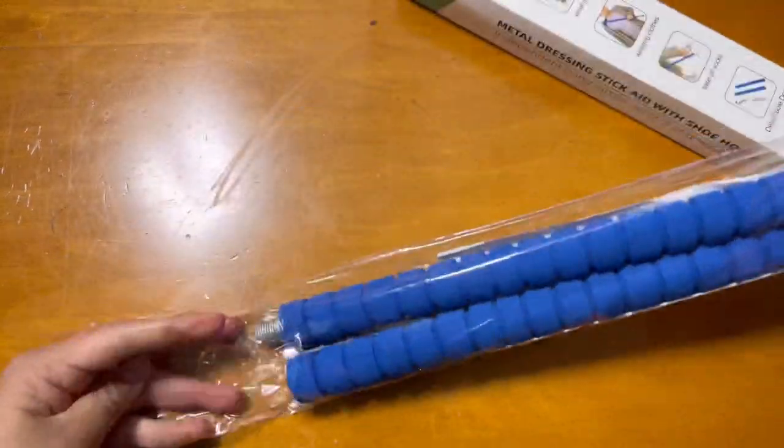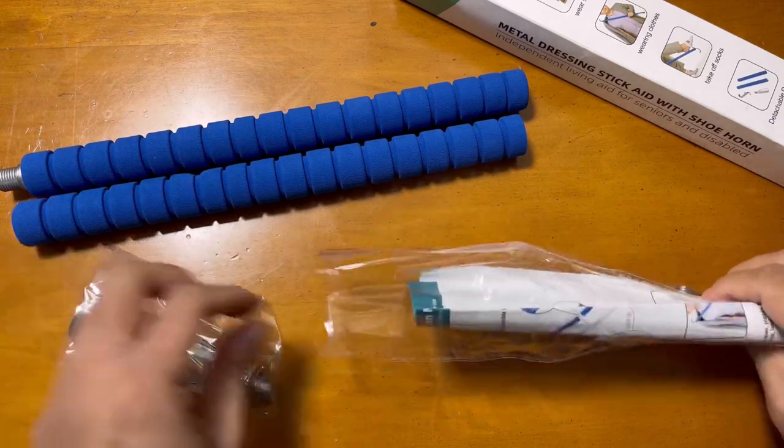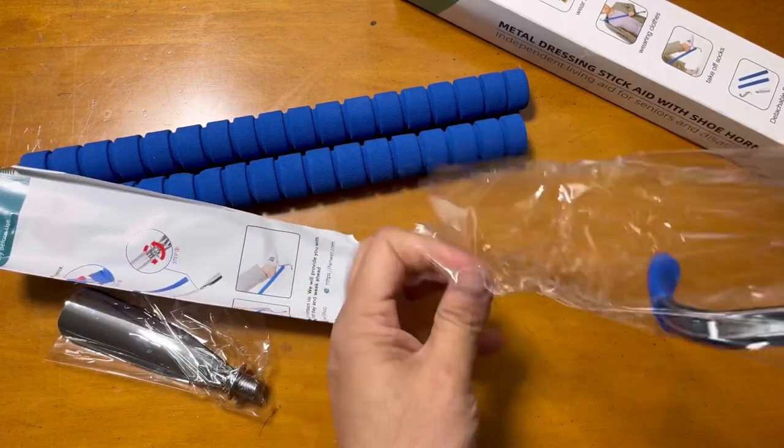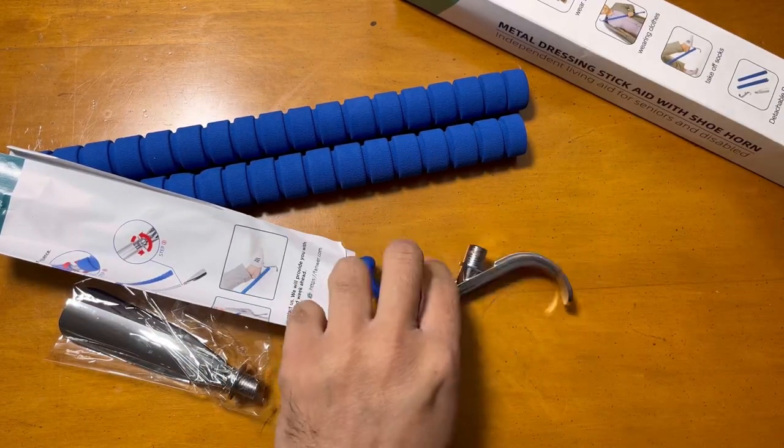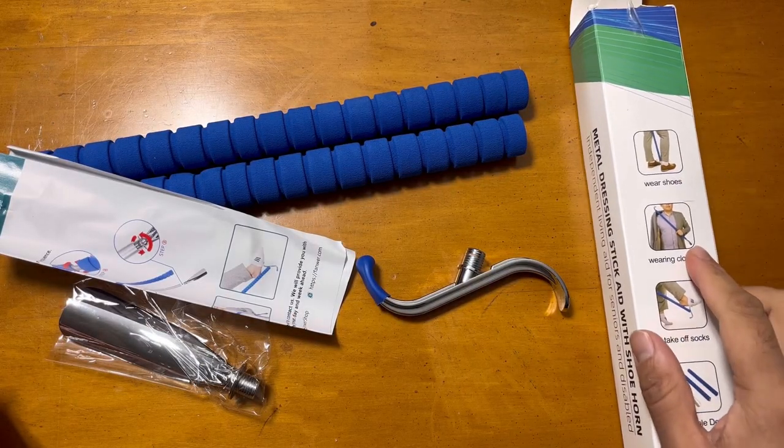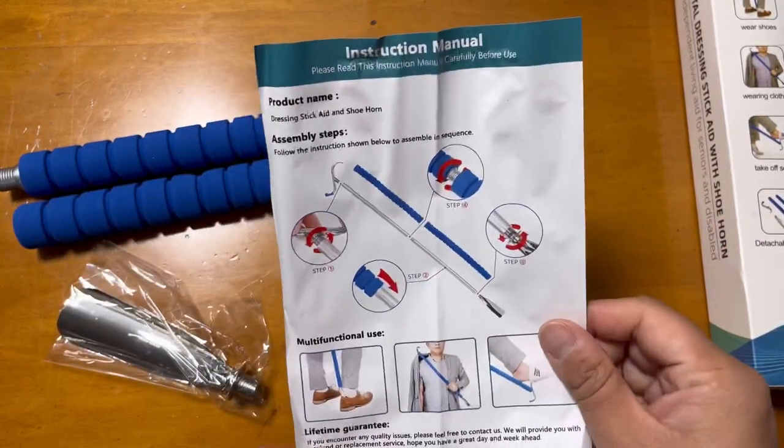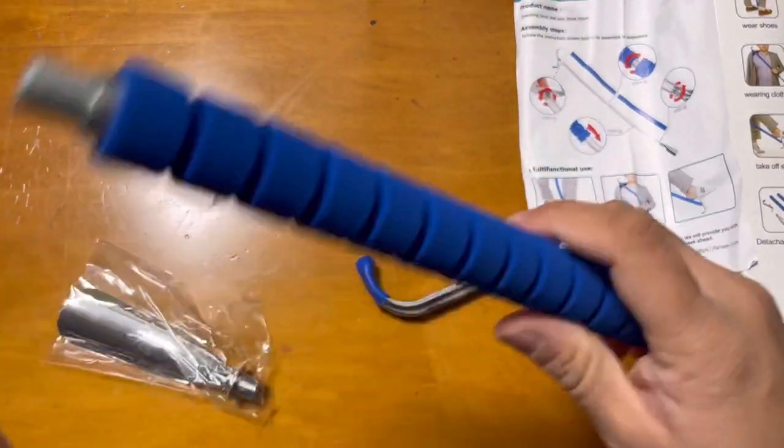Assembling is pretty straightforward, and this thing is very helpful for old-aged people or if they're not able to do things easily or normally. You can use this stick to wear your shoes, take out your socks, or wear your jacket - whatever way you want.